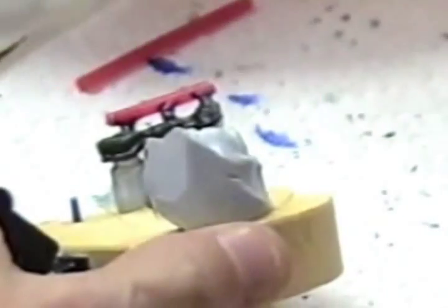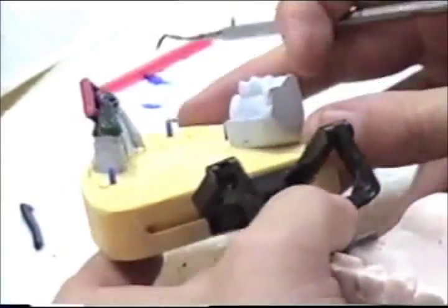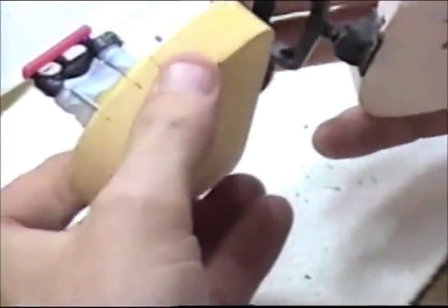Note how short the sprues are here. This is going to be a non-precious alloy. These sprues could be a little longer for non-precious, but it's a good habit to get into making them very short, especially if you use semi-precious alloys, because they really need to be short for that alloy. Otherwise you will get porosity.